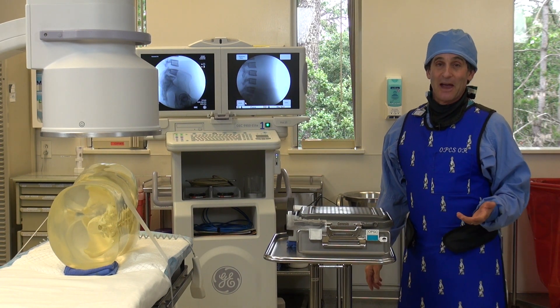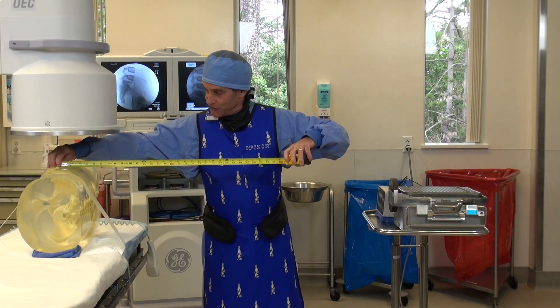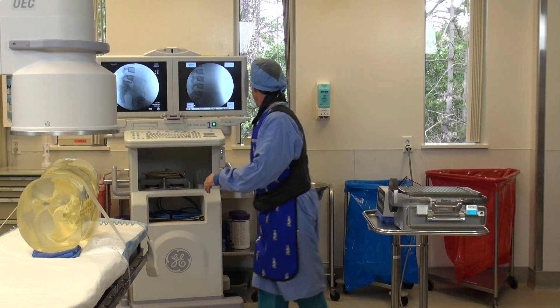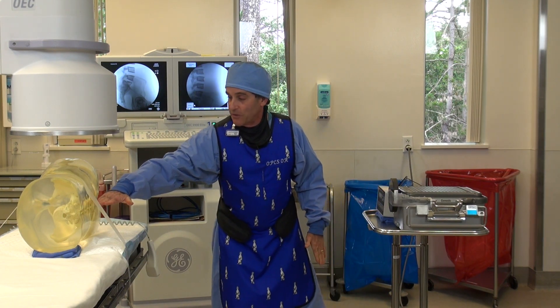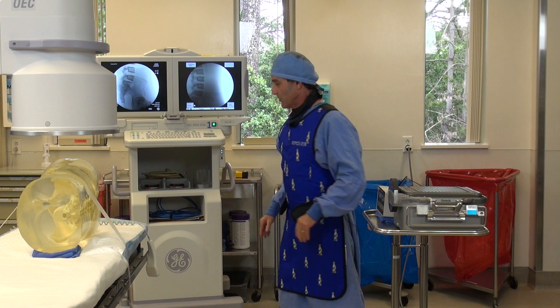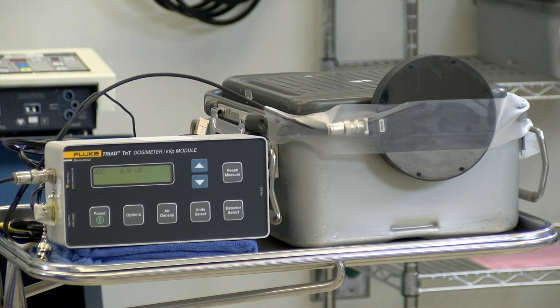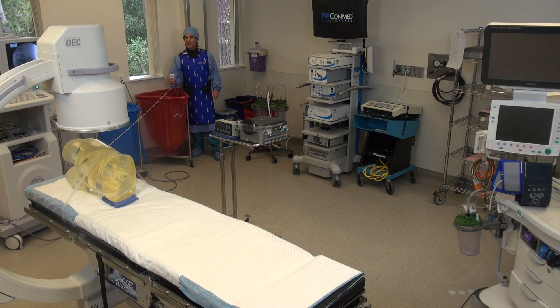We're going to go ahead and start moving back to four feet now. We've moved it back here to four feet — from the center of the phantom to the edge of the ion chamber, we have our four feet. I also wanted to mention that the center of the ion chamber is even with the center of the phantom, so we're keeping everything on the same even playing ground. I'll reset my ion chamber and move back out of the way, and we'll make that second exposure now.